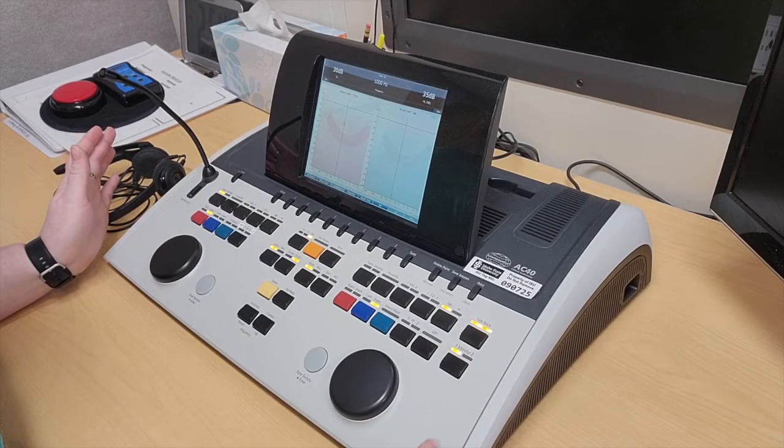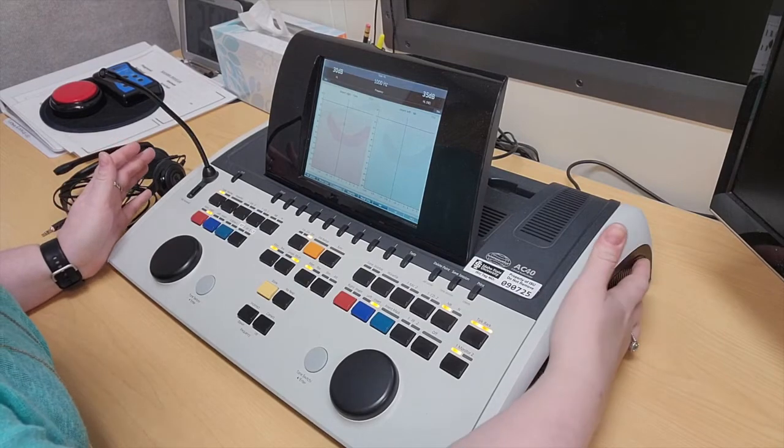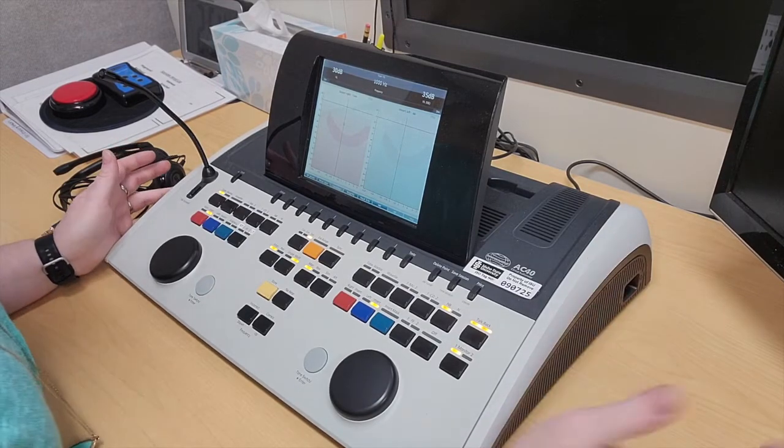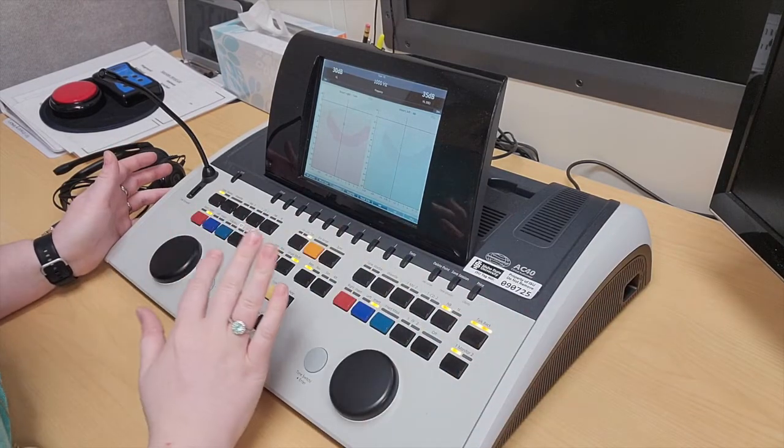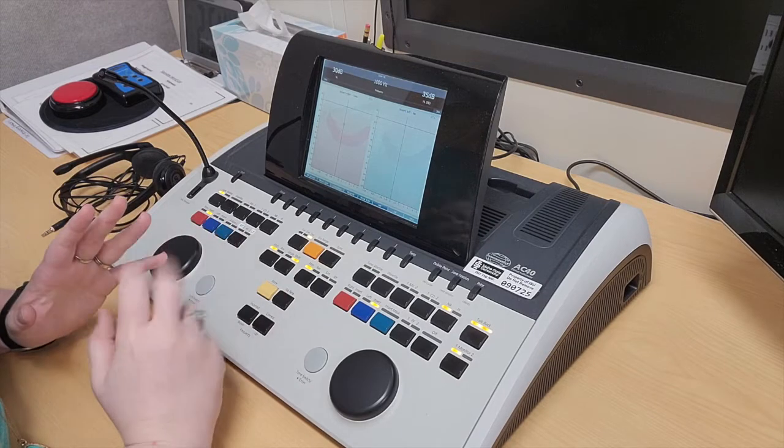In order to turn on the machine, I would click the button that's over here. The machine is already on because it does take a little bit to warm up.